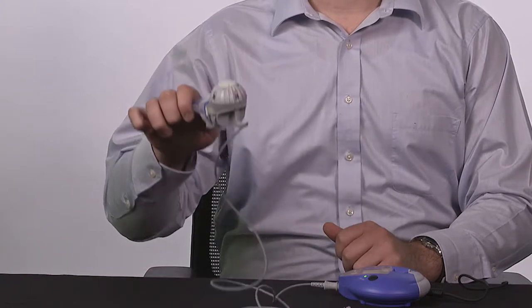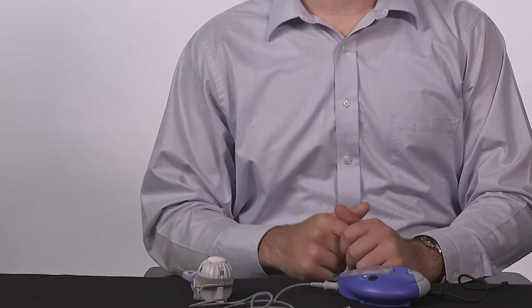To do this, plug the hub into an outlet. It will search for a cellular signal. You will be given additional eRapid handsets that you can use interchangeably with your medicine. Please follow instructions per the instructional sheet.